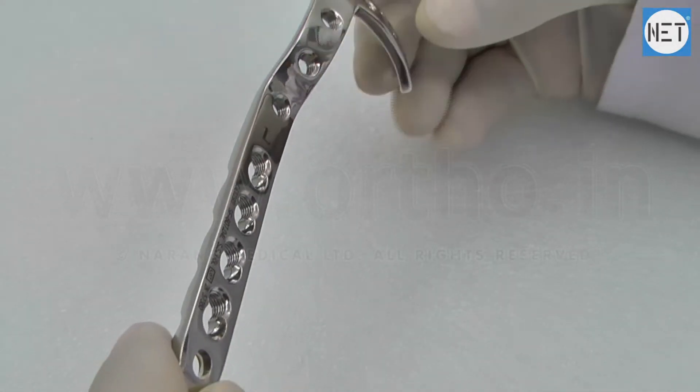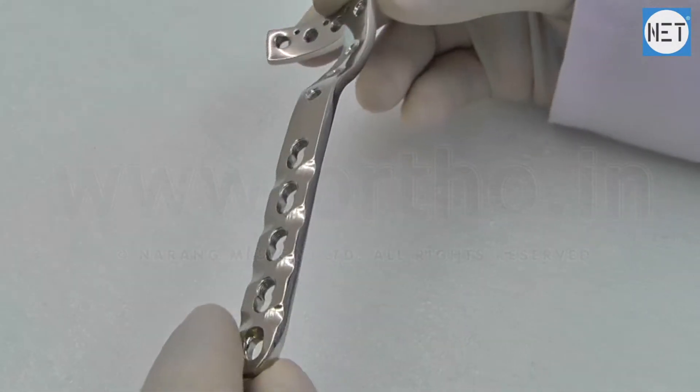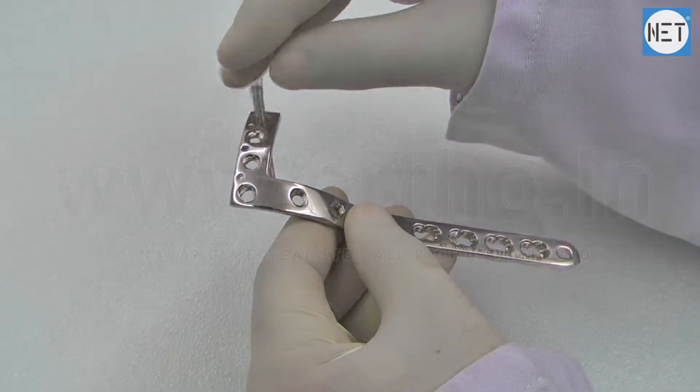The head and 3 proximal holes allow only 3.5 mm safety locking screws.